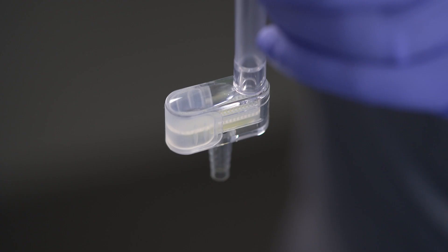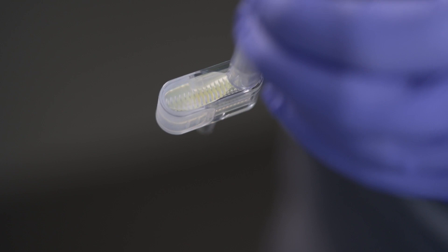There's a two-time magnification window on the top that also assists in making that specimen more visible.